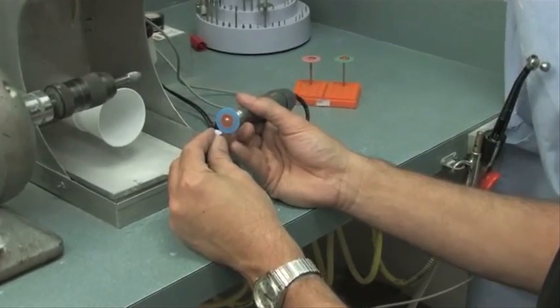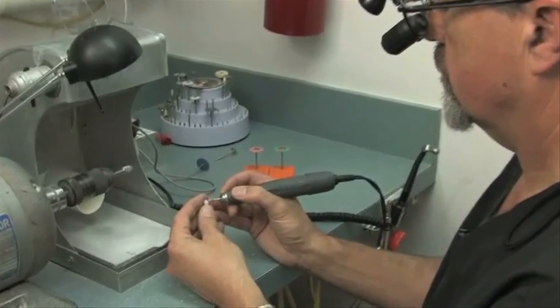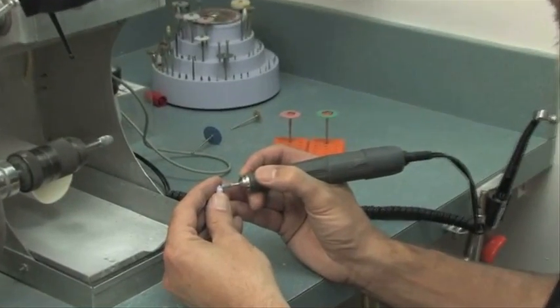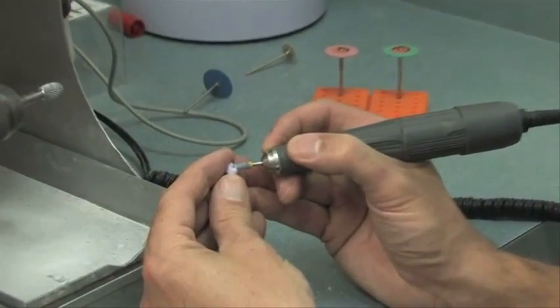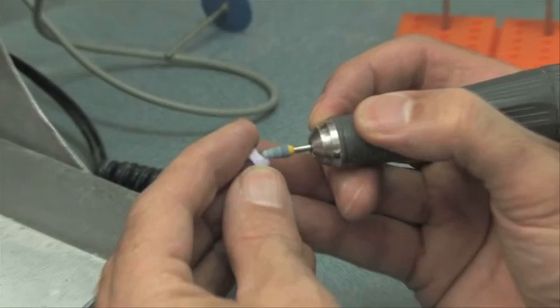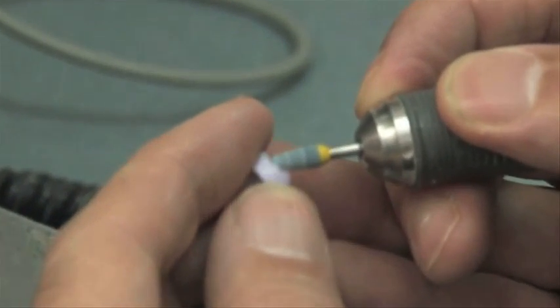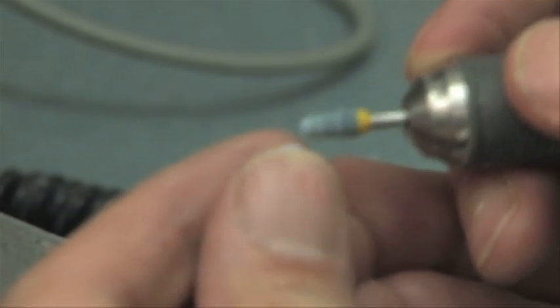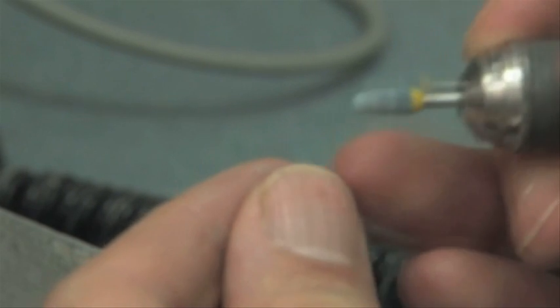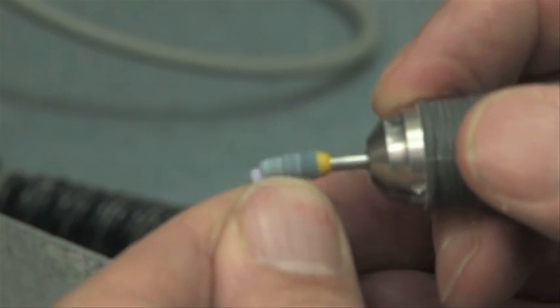Light polishing: we're using a smaller polishing point to get into the crevices on the chewing surface of the tooth to be able to polish them. This is what we call the occlusal surface, and this is the anatomy of the tooth that enables the tooth to chew properly.